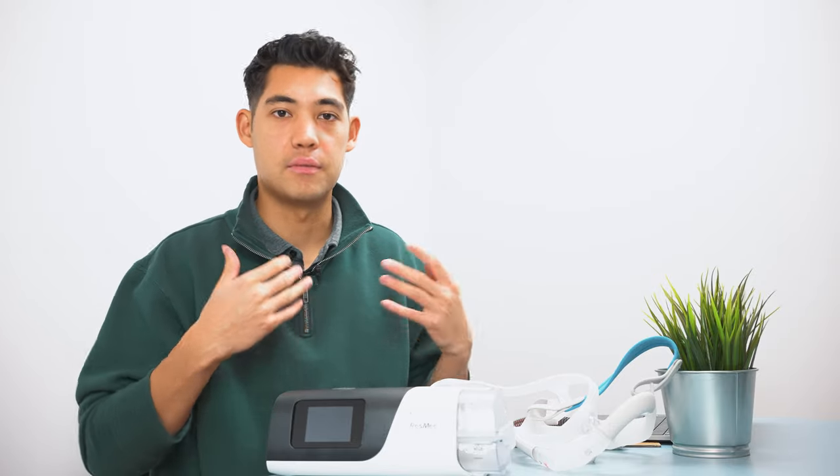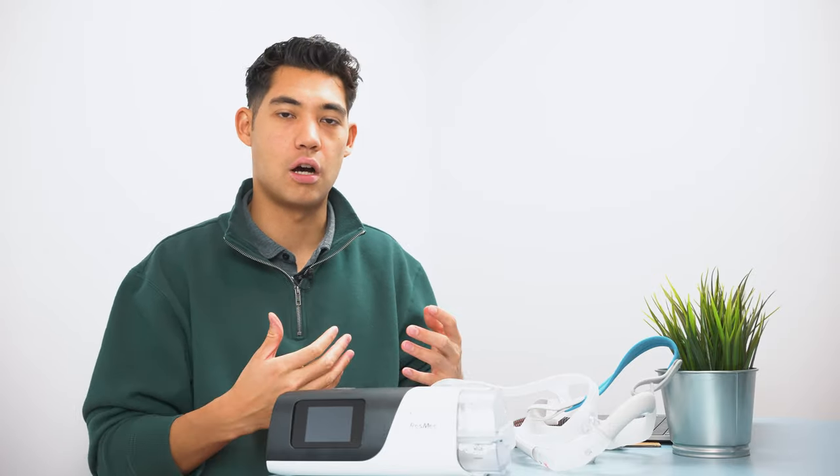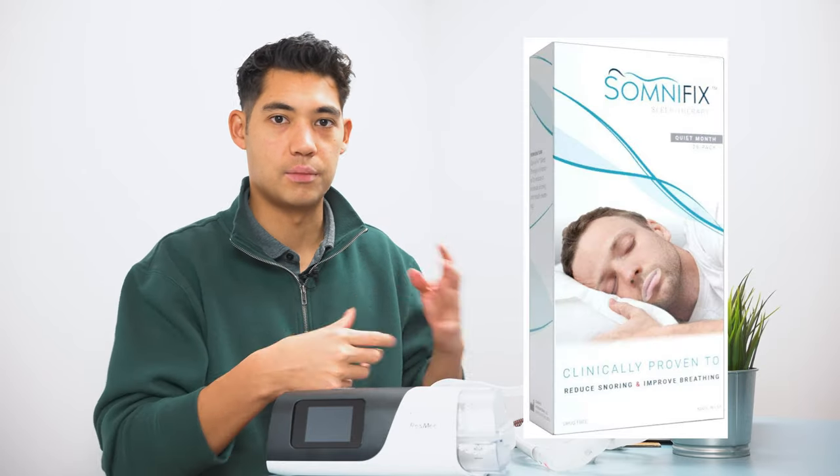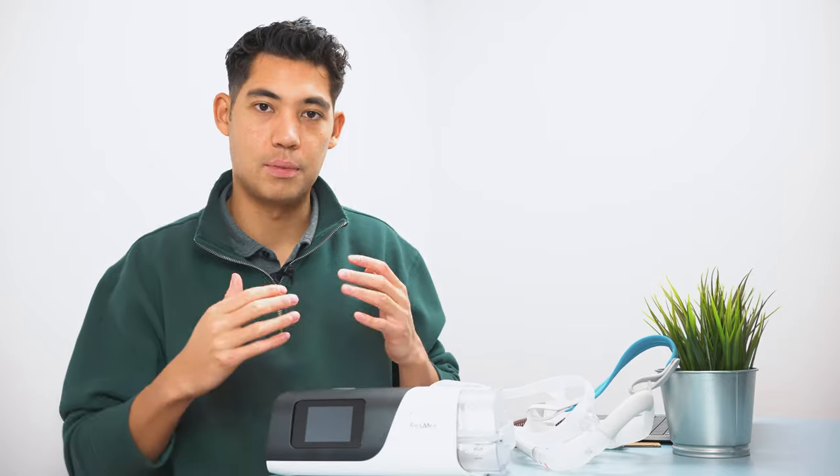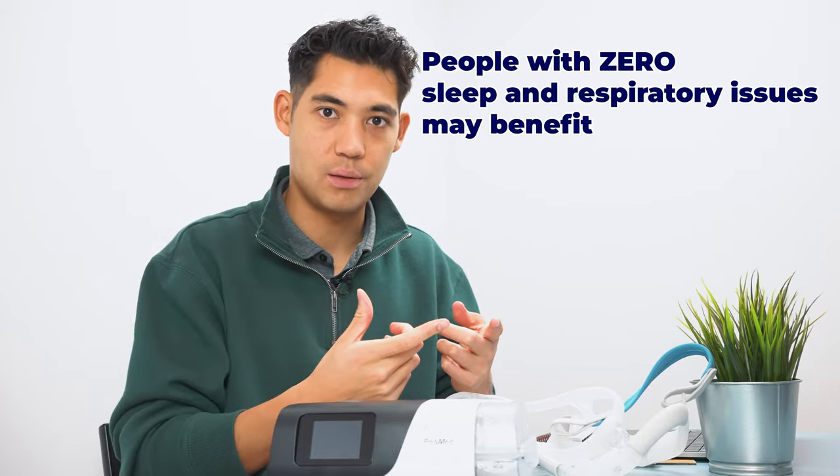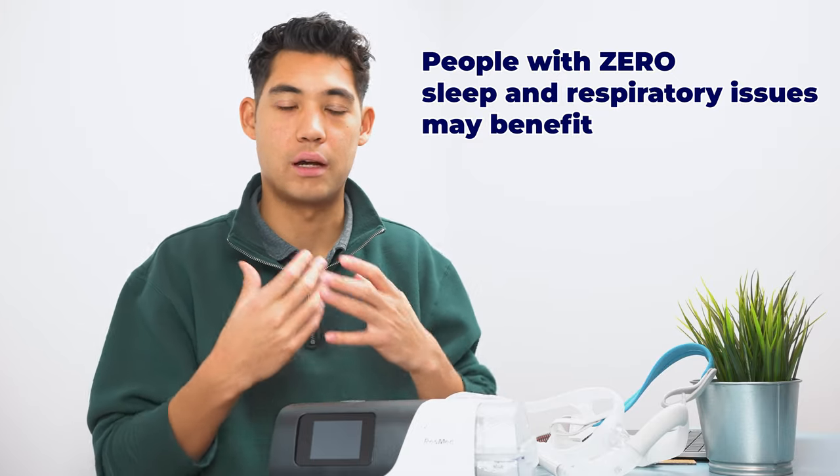This is actually the reason why I decided to make this video because I looked up this topic. We get a lot of questions about this from our clients. A lot of CPAP YouTubers are saying use mouth tape. I'm going to be the one that says I don't think you should use mouth tape. I think mouth tape can be dangerous, especially if you're using CPAP. Now the funny thing is, mouth tape can be good if you are not using CPAP and you just want to practice correct mouth posture and you're not having any nasal issues.